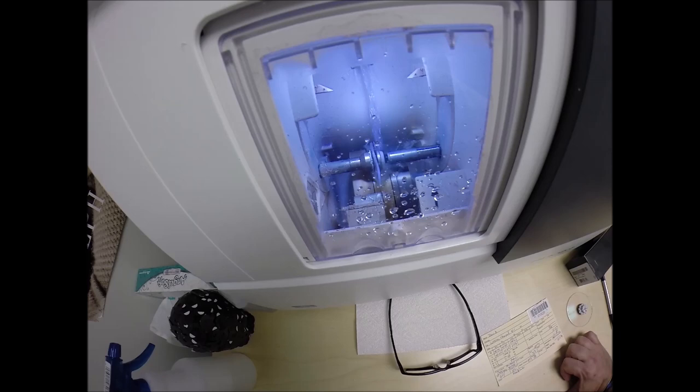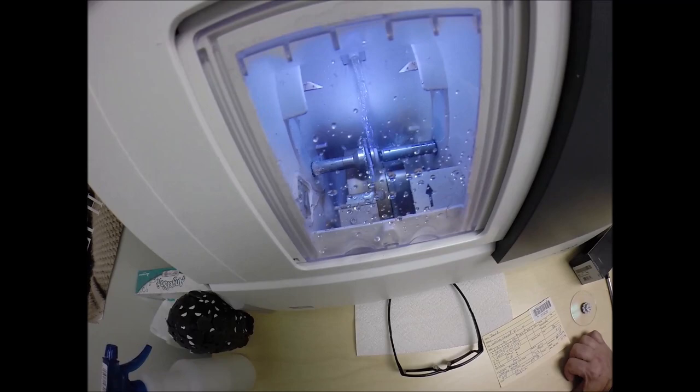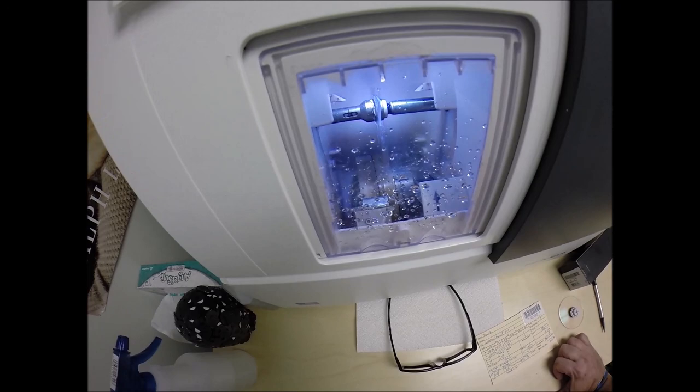They are 40% thinner and lighter than regular plastic. They are virtually unbreakable, they make this sound when they hit the counter, they make this sound when you drop them flat. But they also have 100% UVA and UVB protection built into the lens as well as a premium scratch coating. Now you get your lens, any pair of lenses for free when you buy the frame. Free will be represented by zero with a slash through it. You did pay the $44.99 to have the house anti-glare coating added to that.